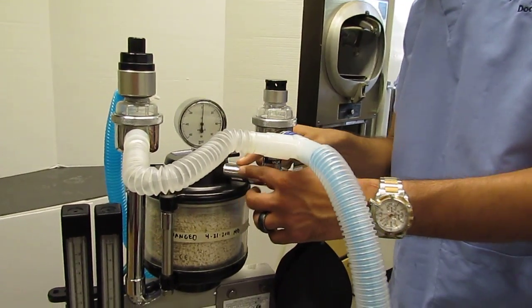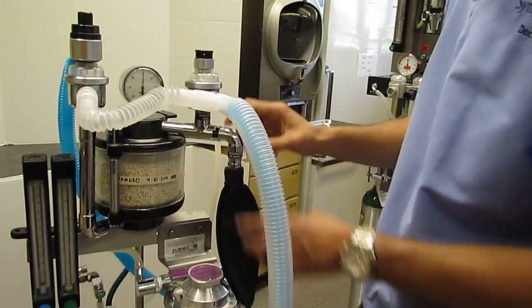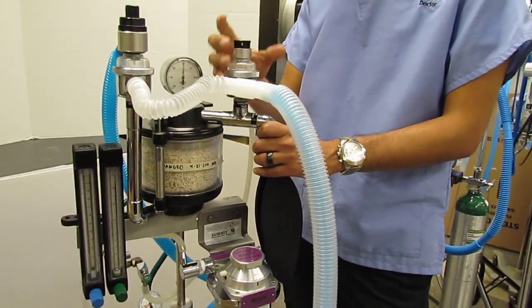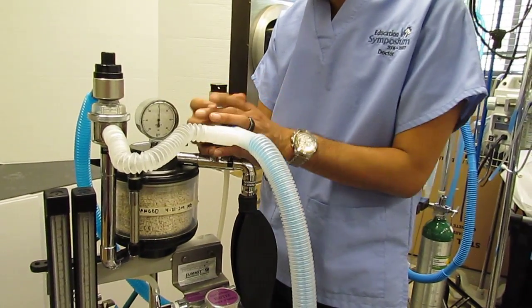So from this point on here, you'll notice that there's also this bag. Now this bag in this machine happens to be associated location-wise with the inspiratory valve. That is just incidental. It has really nothing to do with inspiration per se.